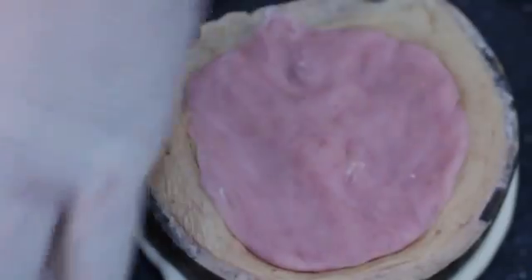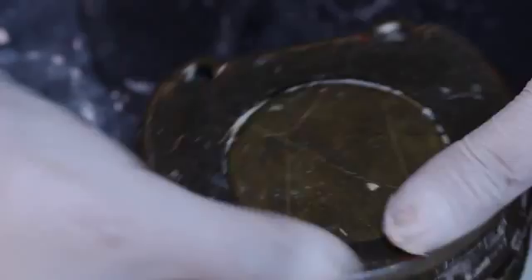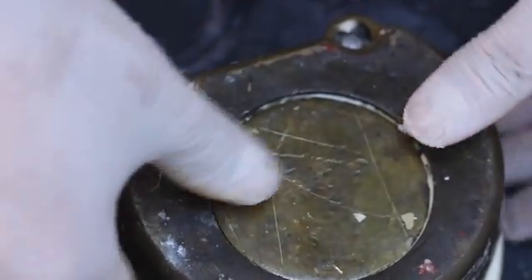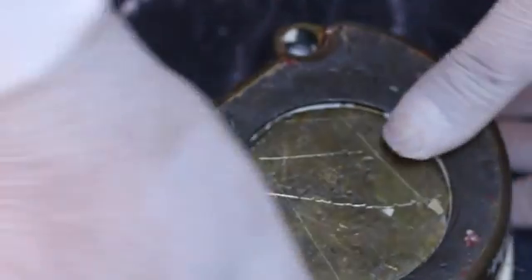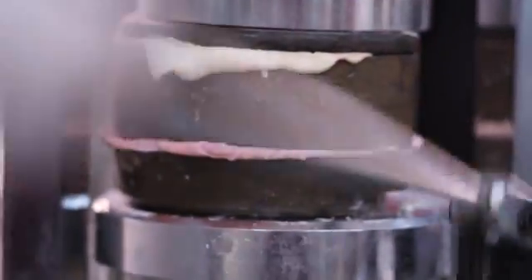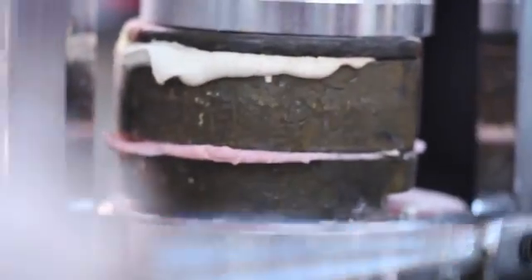The packing process should be accomplished as quickly as possible. It is important to note that the resin should not be handled with bare fingers. During the mixing and packing phases, disposable gloves should be worn.